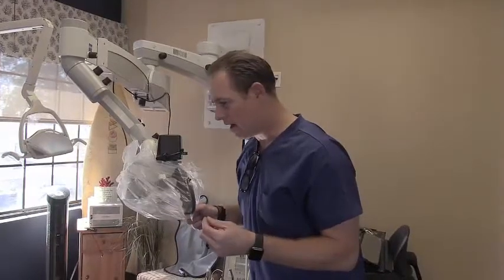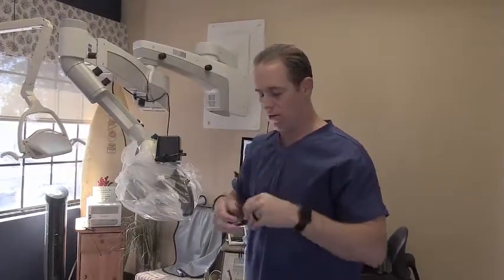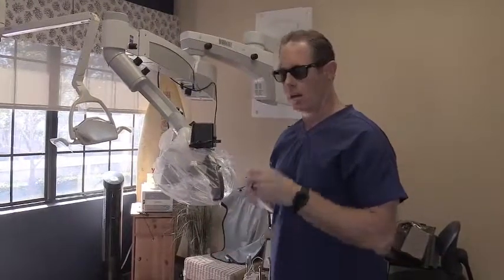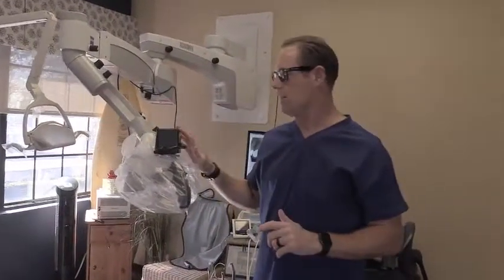What this does is it keeps your head up, so we call it heads-up dentistry, instead of having your head down and kind of frozen in the eye cups. One thing is you have to use 3D glasses to be able to see the three-dimensional image that's conveyed.